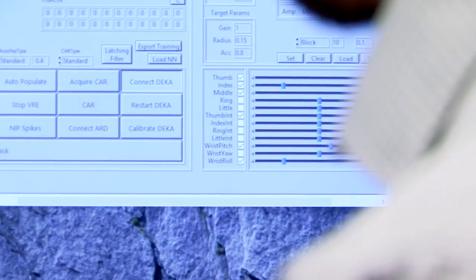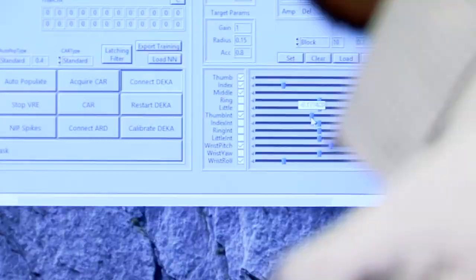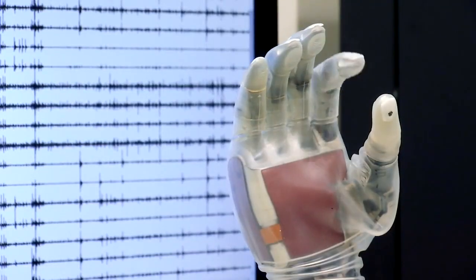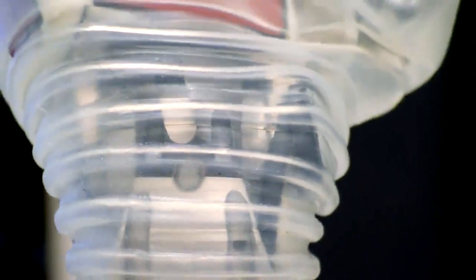If they have the surgery on a Friday, they can participate in experiments on a Monday. Right now I'm controlling this with these slide bars that allow us to move the individual fingers one by one. But what we would ultimately be doing is interpreting this information from the body.